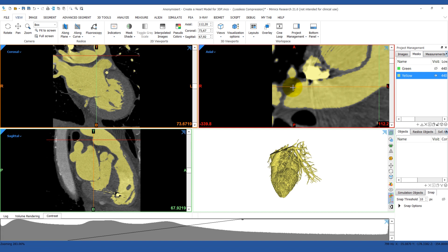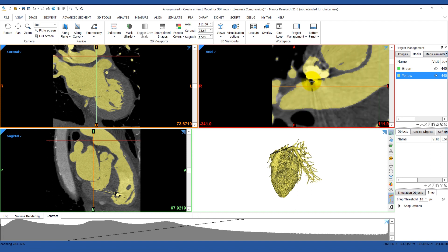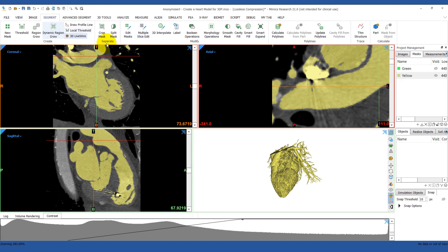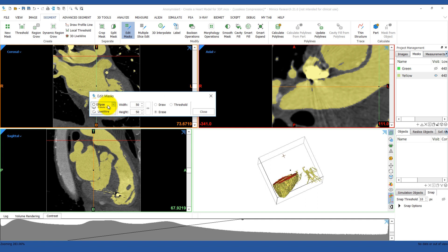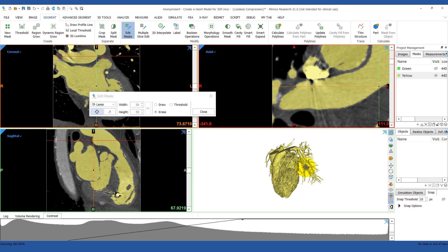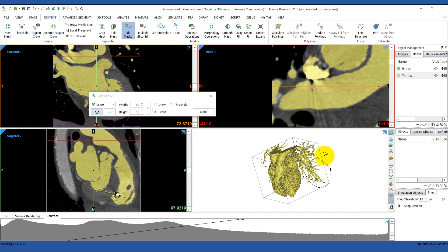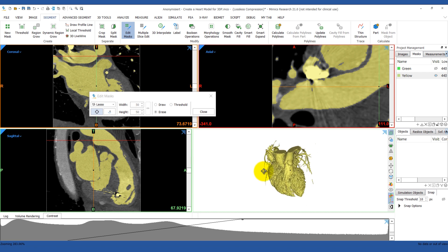You might have to repeat this process in other areas of the segmentation, like in this area where the artifact is bleeding into the pulmonary artery. Another thing you might want to do is remove these distal pulmonary veins. You can use the Edit Mask tool in the Segment tab and remove them in the 3D window. You don't have to worry about getting every little bit, because we can always do another Region Growing operation.